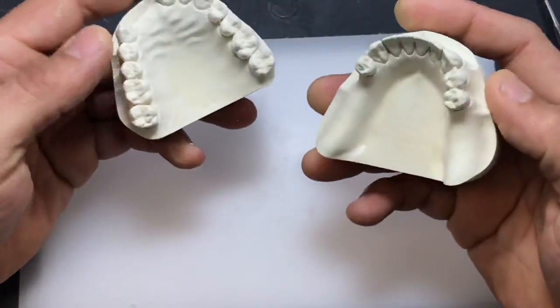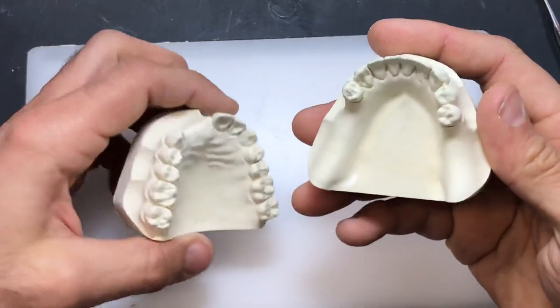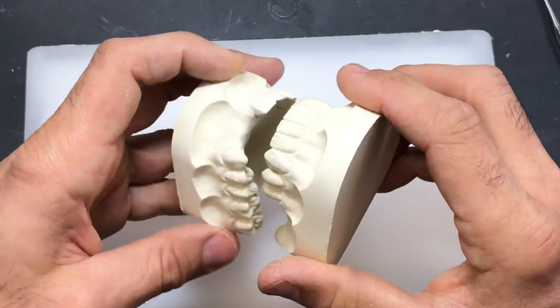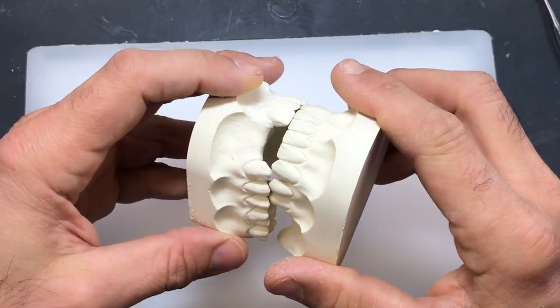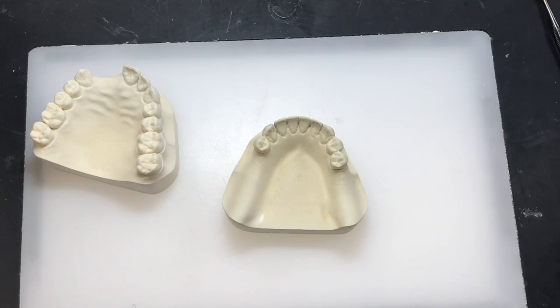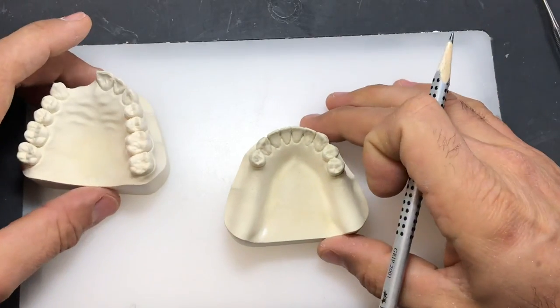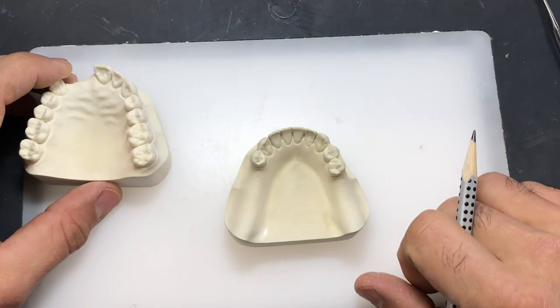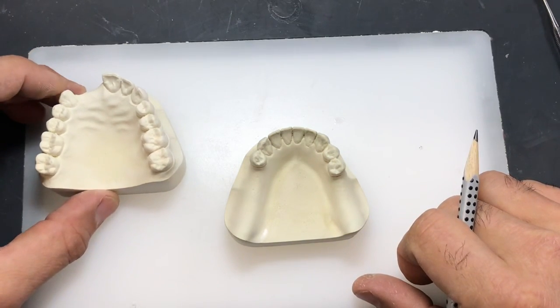Some scenarios you can get away with just hand articulating it, but we don't have sufficient dentition in the posterior here to give us a nice positive bite. So what we're going to do is fabricate a lower partial bite block. On the duplicate model, I then transferred over to our master cast and will mount the master cast.